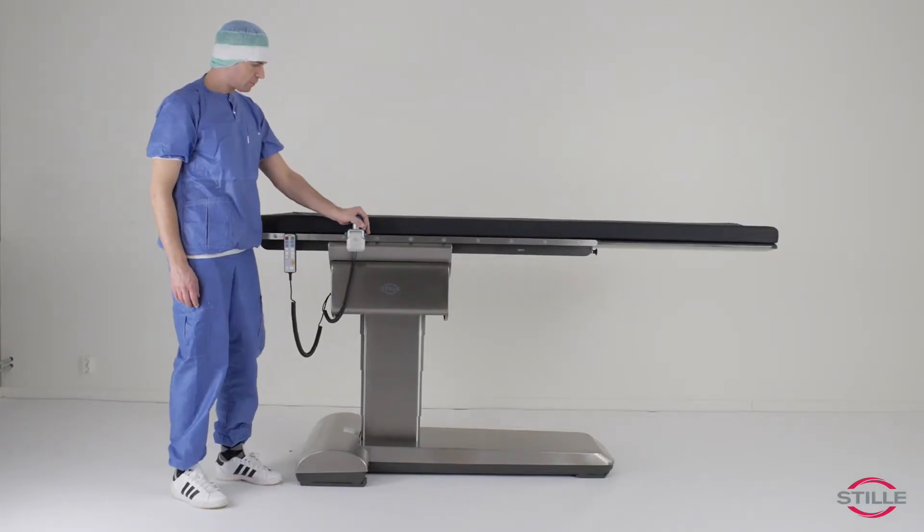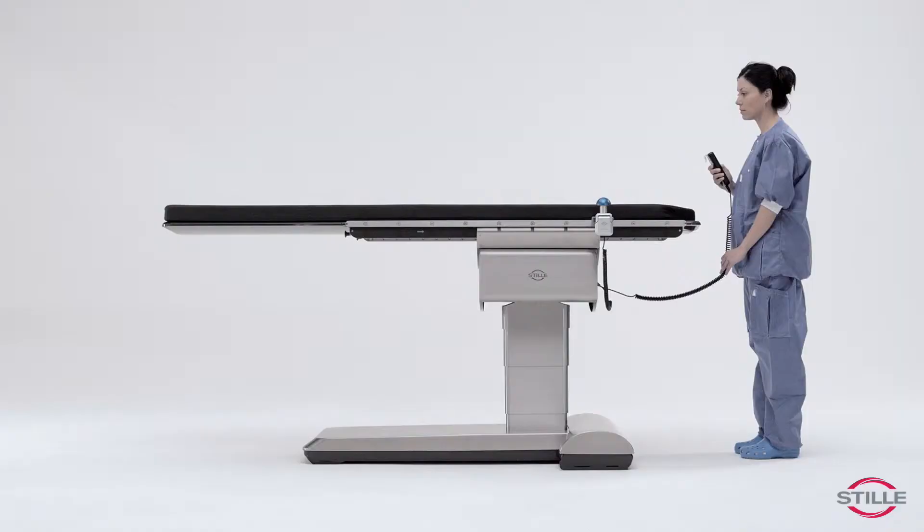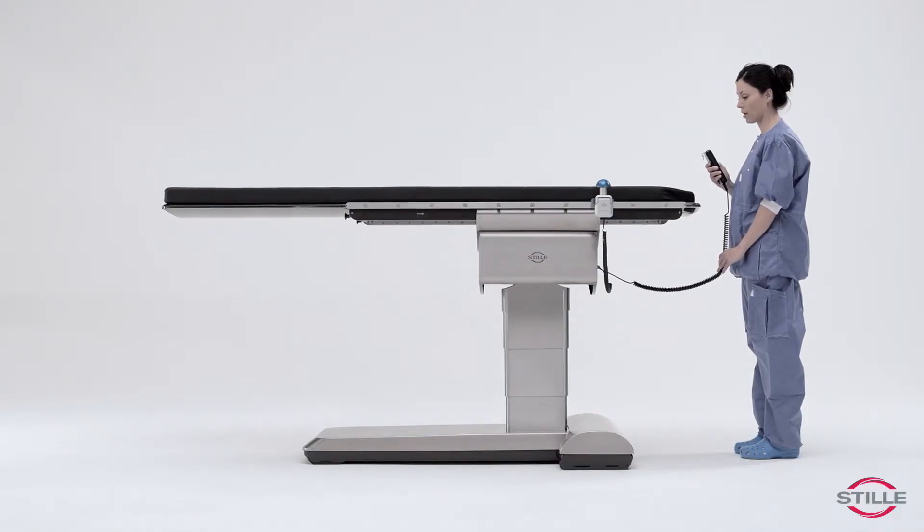The pan handle's only function is to maneuver the floating tabletop. All other functions are maneuvered from the hand control.